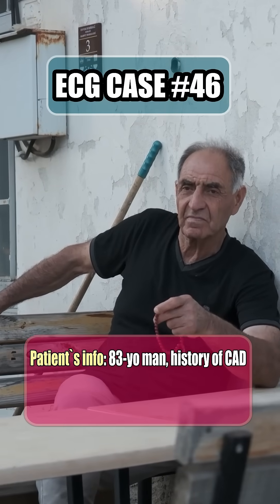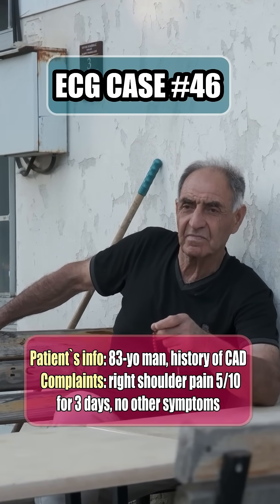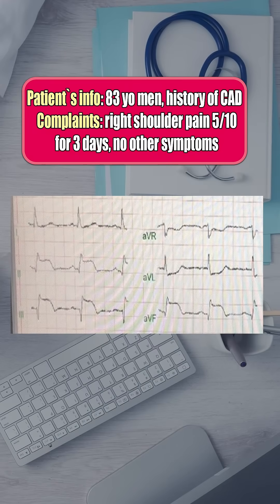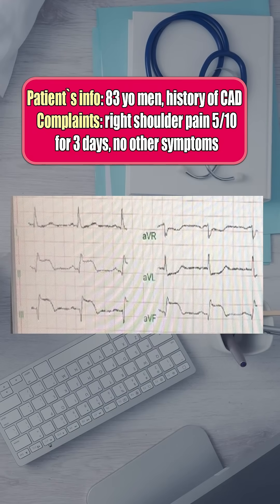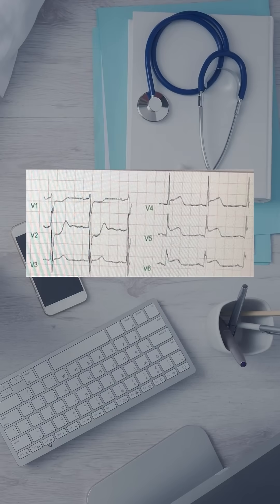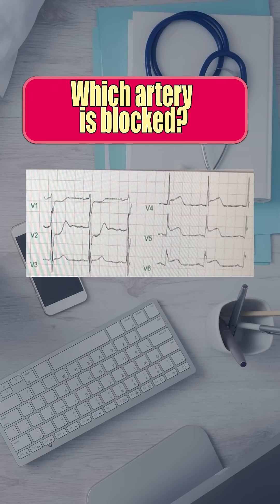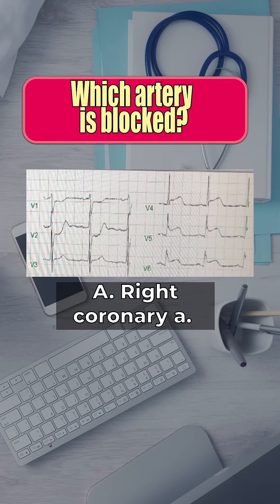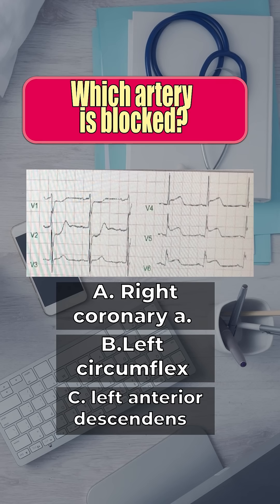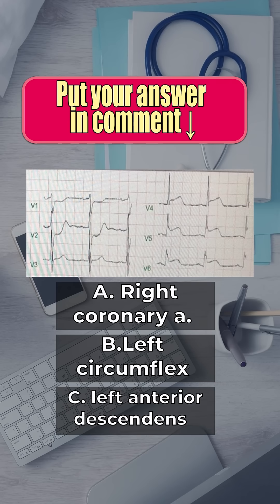An 83-year-old man comes in with only right shoulder pain for three days, and this is his ECG. Which artery is blocked — right coronary, circumflex, or LAD? Stop and write your guess in the comments.